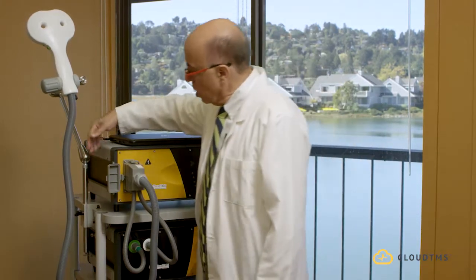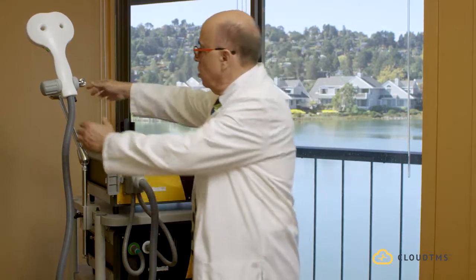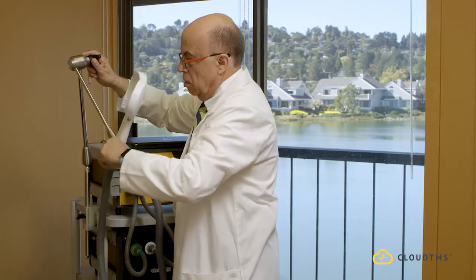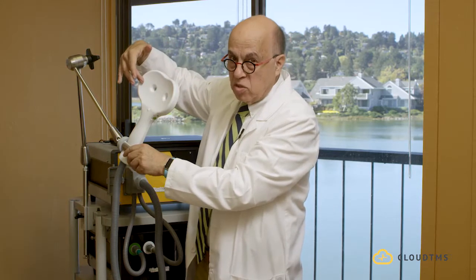Another thing you see is the arm that's connected to the top shelf here, and the arm holds the coil. The coil is what's going to fit over the patient's head. The arm is very flexible and can easily move — you move it into any position you want and then fix it, and then the coil fits over the patient's head.